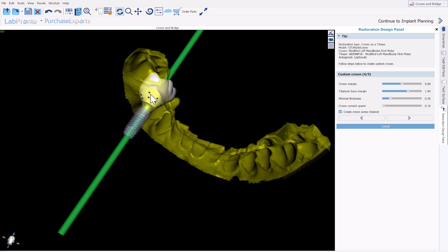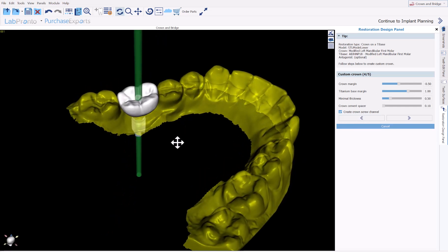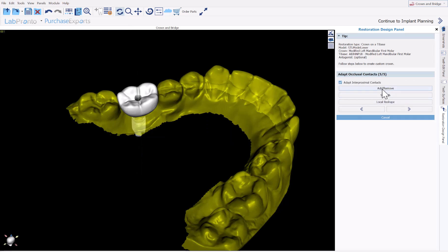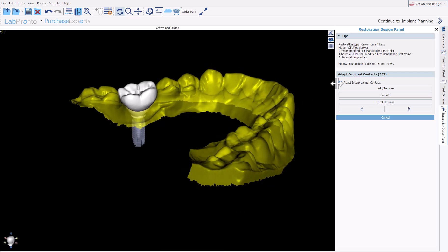If we want to modify the connection, you can grab and drag any of the nodes. Use the slider to modify the different settings in terms of the shape of the connection. There is also a checkbox here: Create Crown Screw Channel — yes or no — you can toggle it on and off. Once that's done, click Next. Here's the final step where you can use editing tools to fine-tune the shape of the crown. You also have a checkbox to Adopt Inter-Proximal Contacts — if you don't want the software to change anything, uncheck that box — and then click Next.